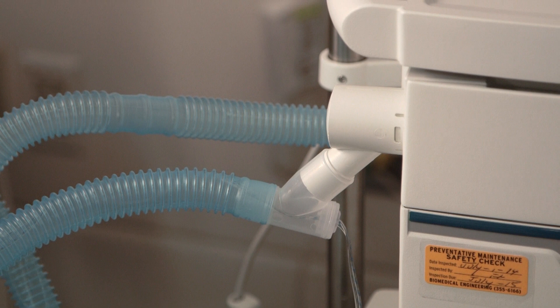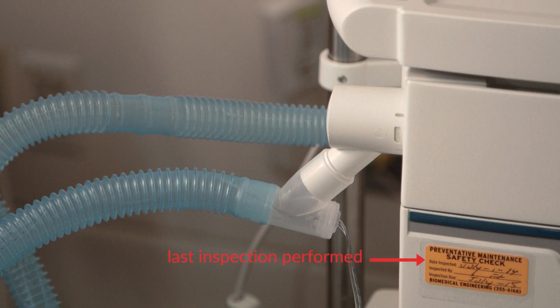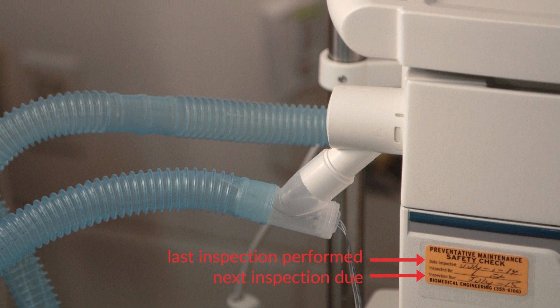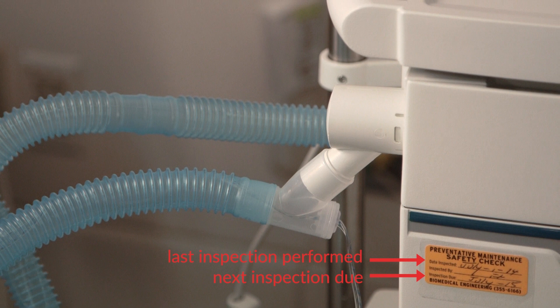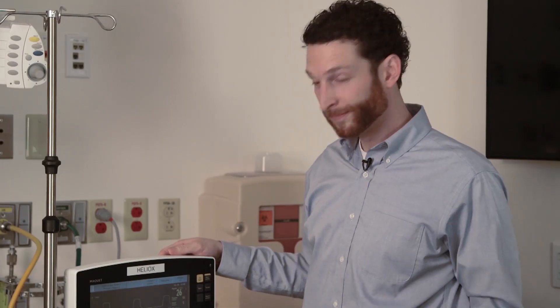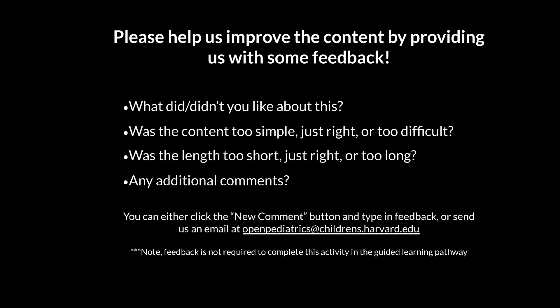As part of our safety inspection, we should make note of the last preventative maintenance inspection performed by Biomedical Engineering and when the next assessment is due. Clinicians should pull or not use any machine that has gone beyond its preventative maintenance or safety inspection. Proper function and performance testing is necessary to ensure the highest quality of care and safety is provided to our patients. The last portion of our ventilator safety assessment is to assess the function of the internal batteries, if applicable. To do this, we must unplug the ventilator from the wall and assess that the ventilator alarms and tells us battery operation has taken over. This concludes our ventilator safety assessment.